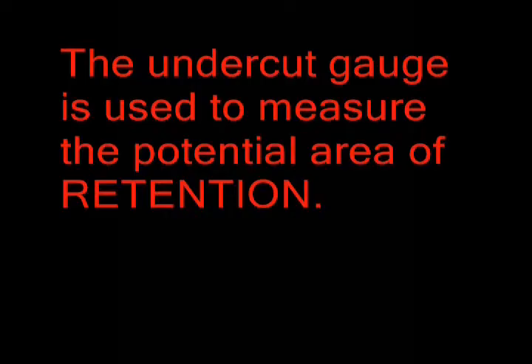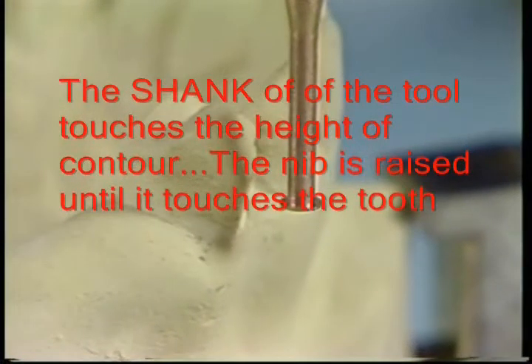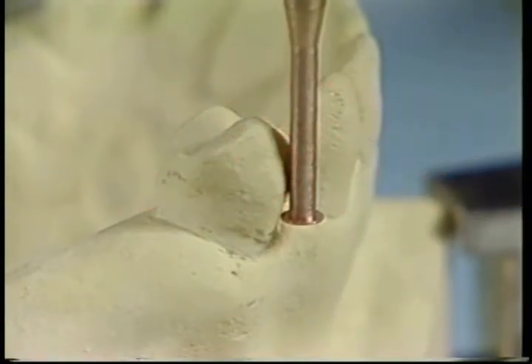The undercut gauge is used to measure the areas of potential retention. In this procedure, the shank of the tool will touch the height of contour. The nib is then raised until it touches the tooth.